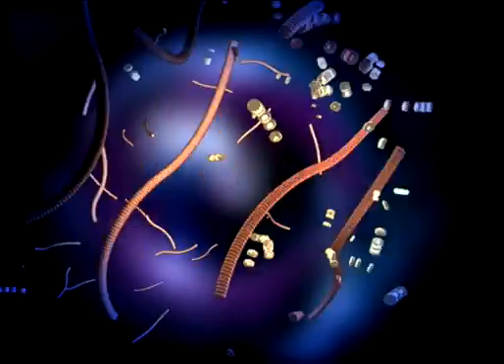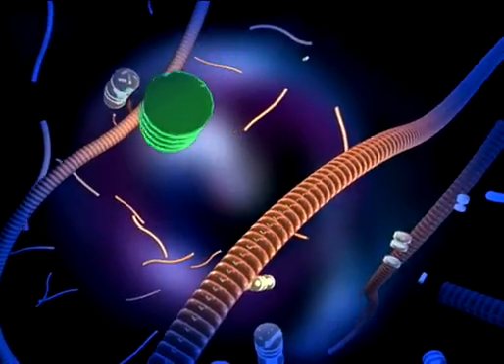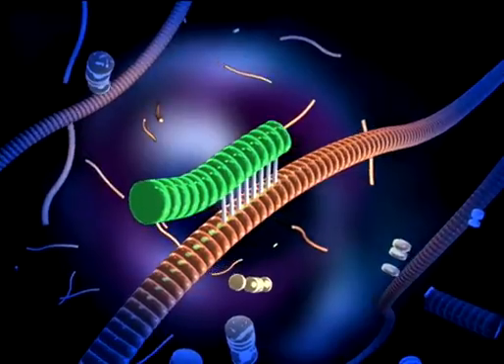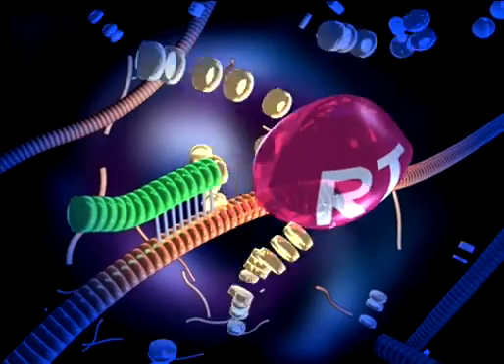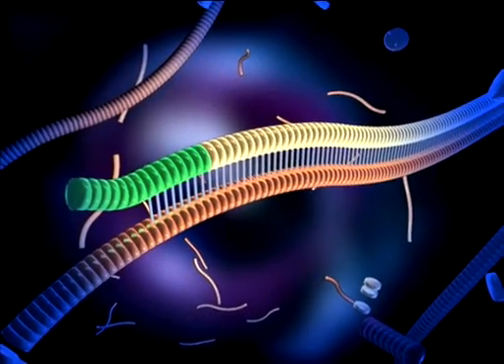During amplification, the first primer binds to the nucleic acid target, and reverse transcriptase enzyme initiates polymerization of the DNA strand, a mirror image of the target.